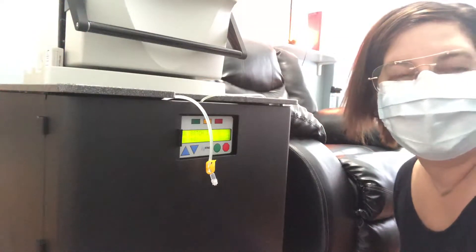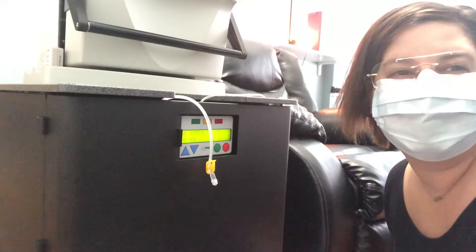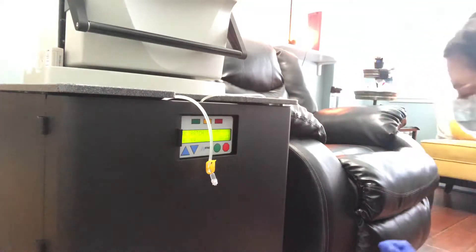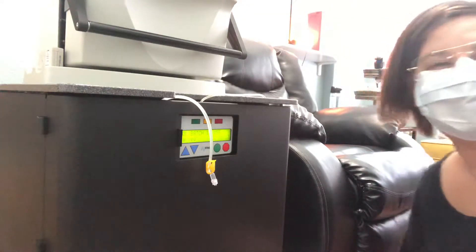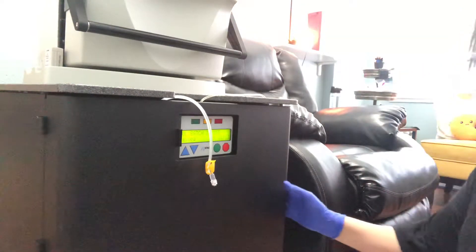Hi guys, how are you? It's been a while since I've done a video. I'm actually going to be doing the dialysate microbiological testing, so I'm going to be showing you how that's done.